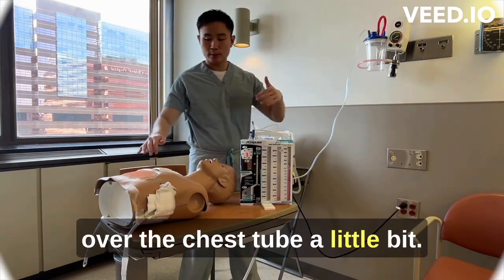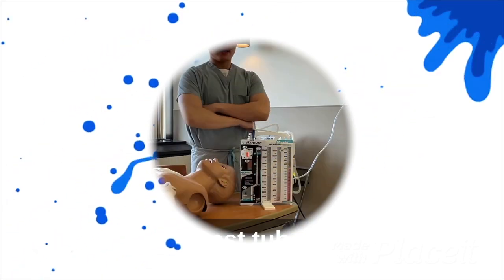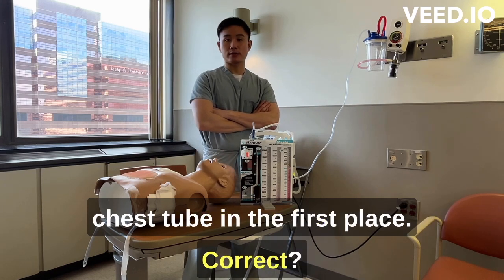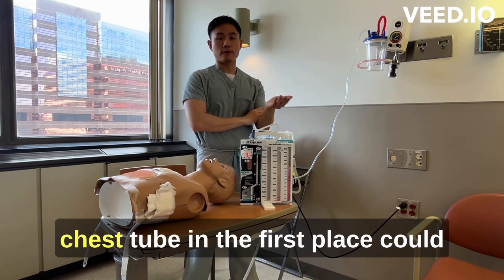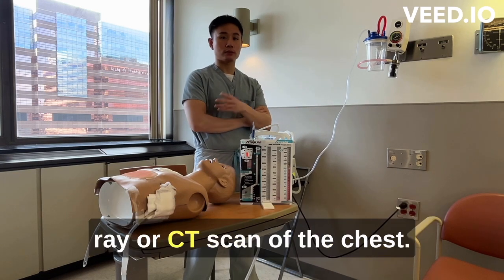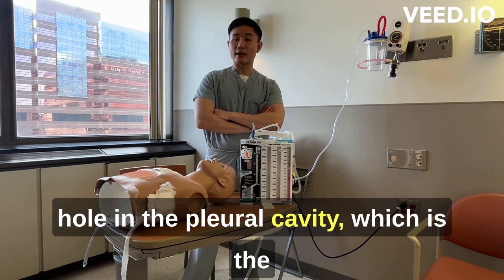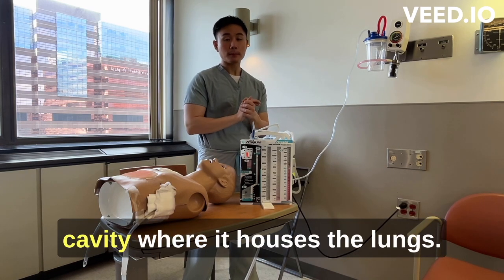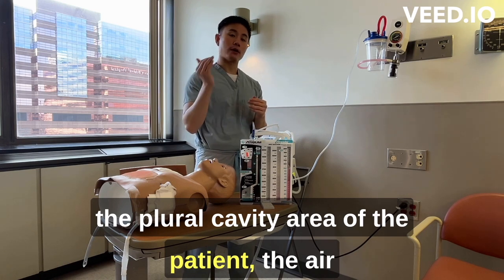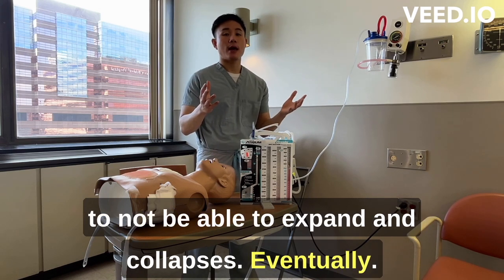Today we're going to go over the chest tube. First and foremost, we have to discuss why we insert the chest tube in the first place. The reason could be because the patient is having a pneumothorax, which can be visualized on a chest x-ray or CT scan. A pneumothorax simply means there's a hole in the pleural cavity — the cavity that houses the lungs — and if there's a hole, air will continuously enter, causing the lung to be unable to expand and eventually collapse.